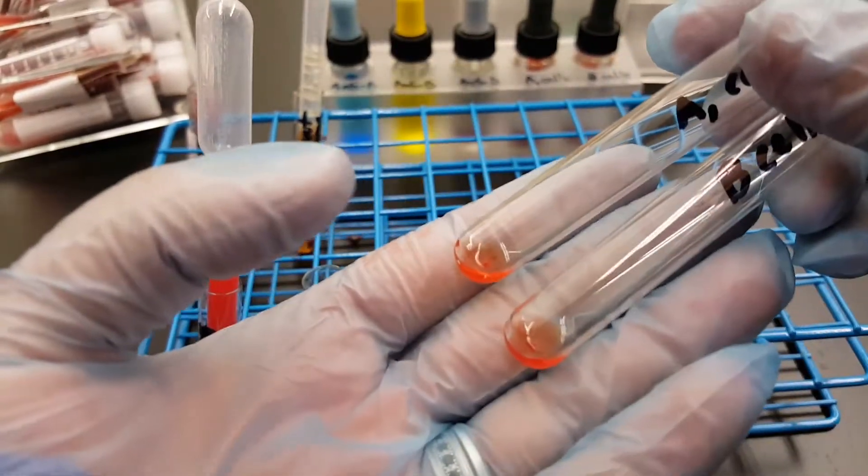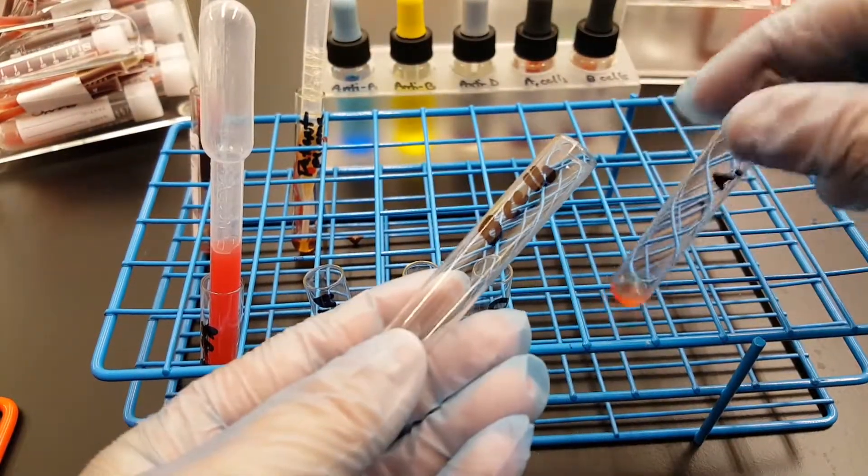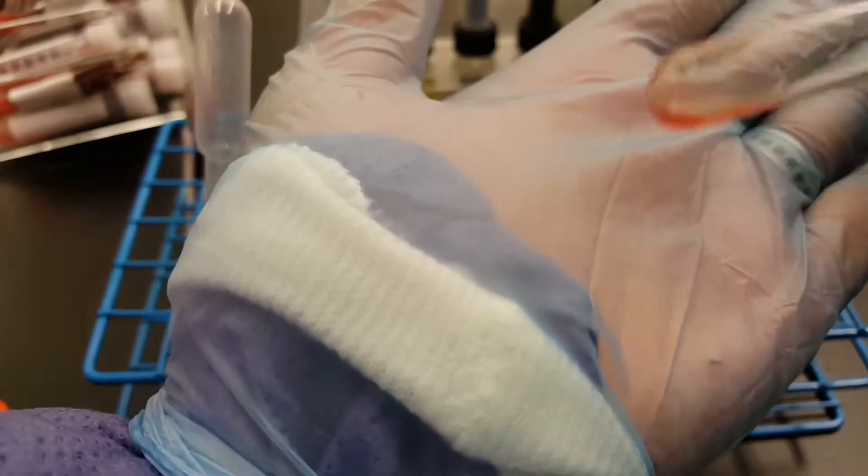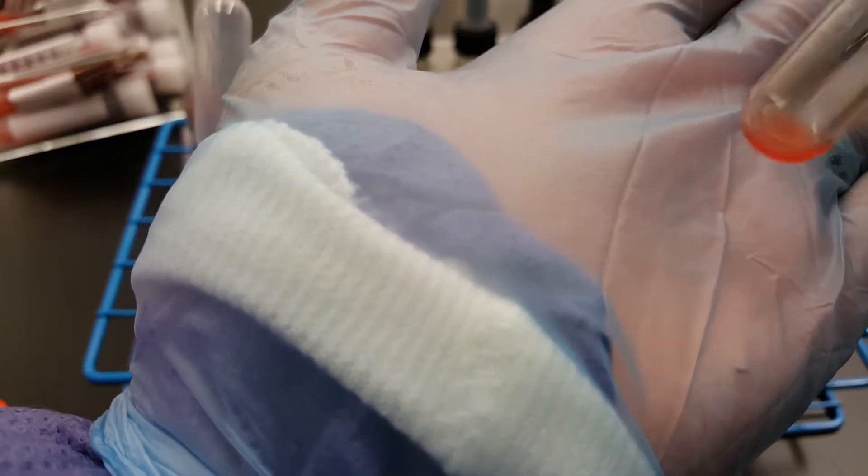Okay, and the B cells are breaking apart.